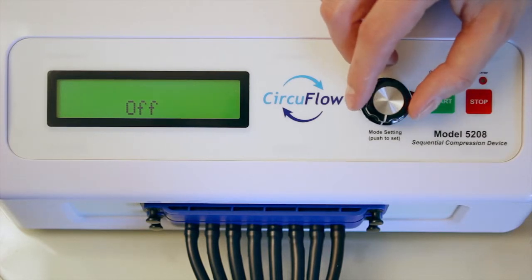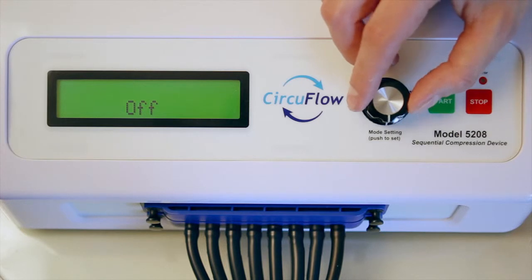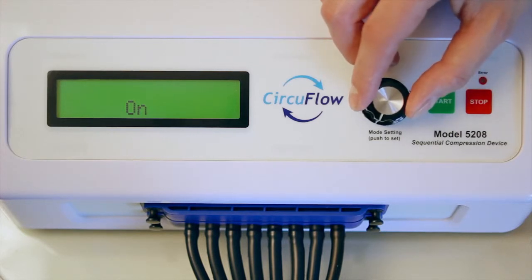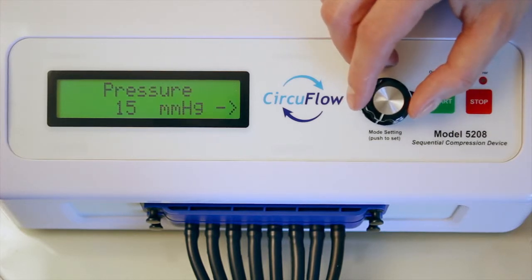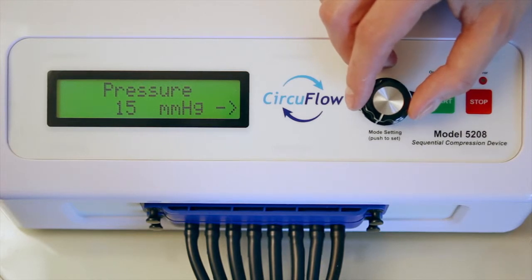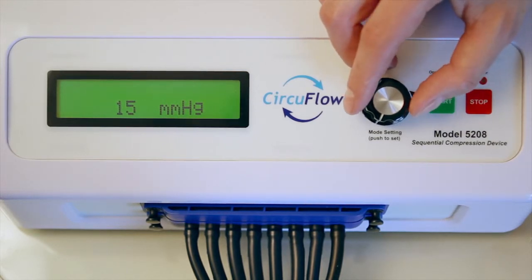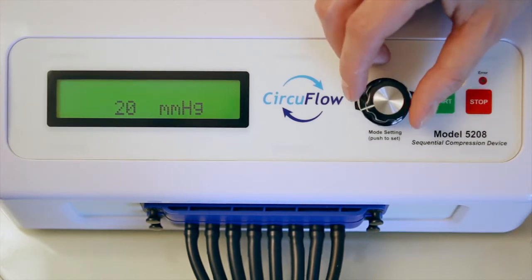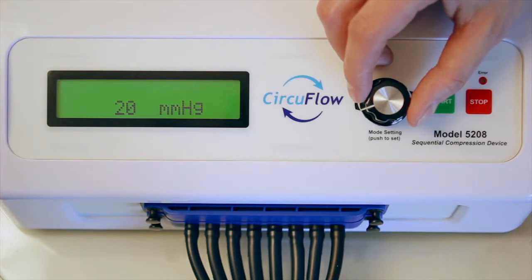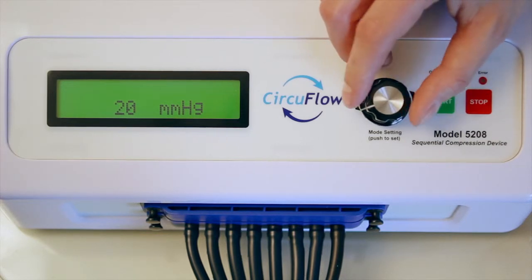Select whether uncorking should be on or off before the treatment begins. If uncorking is on, select a pressure between 15 millimeters of mercury or 20 millimeters of mercury. Push the knob to confirm the pressure and scroll to the right to exit uncorking settings.